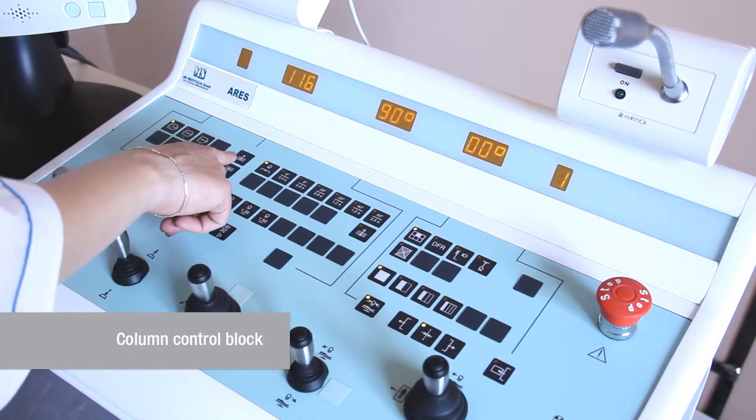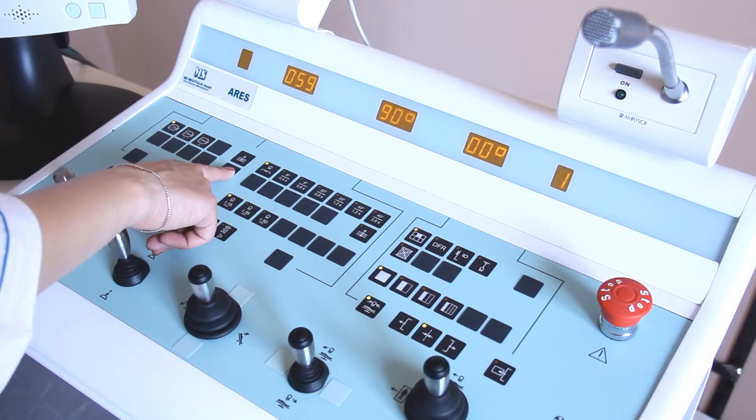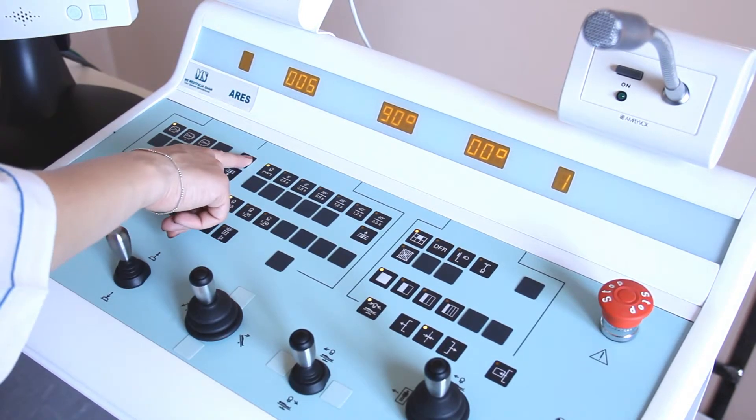Block for adjusting the slice depth of tomographic examination ranging from 0 to 330 mm.